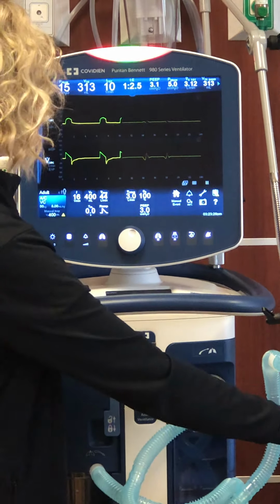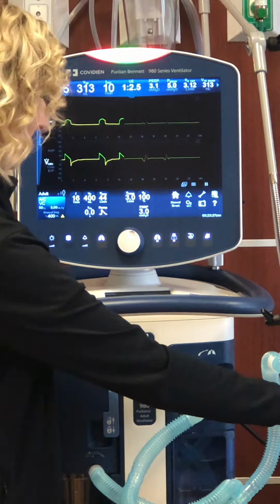So for vent alerts, I'm going to do a disconnect so you can see a high alert alarm. You can hear the tone, and it should flash across there too to let you know. There's also a log in there so you can track what alarms went off. So if you call respiratory and it's not doing something, when they come up, they can look through that log, see what alarms were tripped, and we can try to determine what happened or why that was happening.